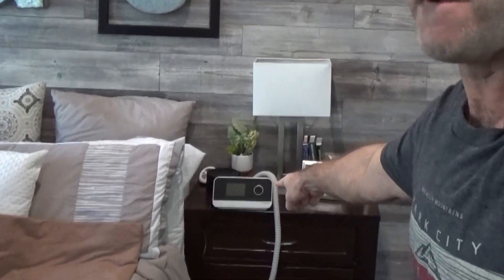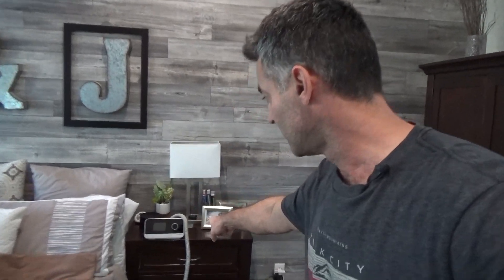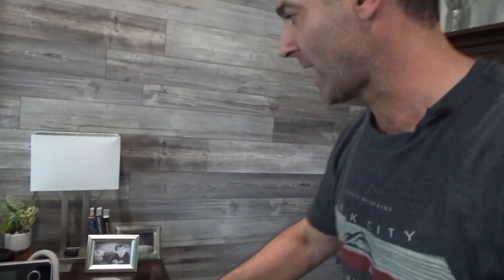Hey there, CPAP people. Last video I did was an unboxing of the iBreeze — the Wellu slash Resvent slash whatever other name they put on it, the iBreeze. Let's take another look at it.